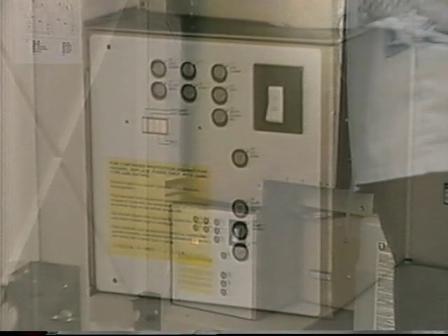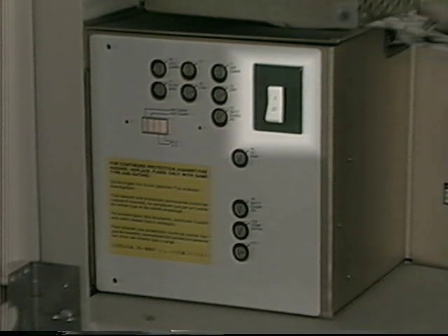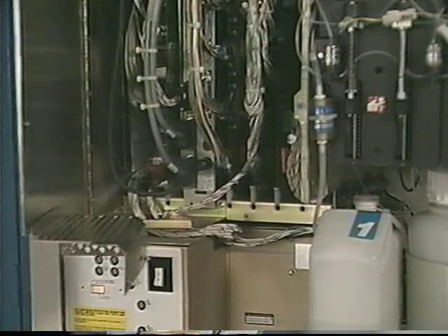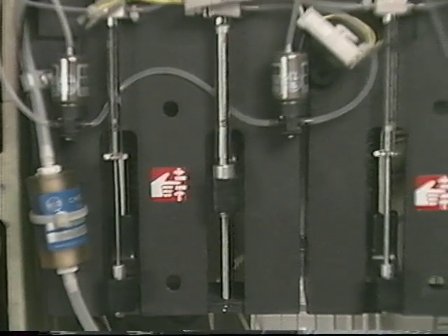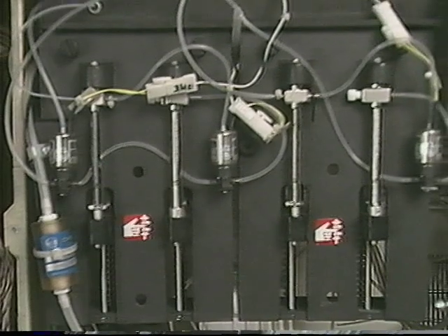The main control system of the instrument is located behind the lower left-hand side door. The control system interfaces the power supply and the computer system to control all aspects of instrument operation. The main power on-off switch is located on the AC power board on the extreme lower left. The computer system control boards are located above the AC power board in the card cage assembly.